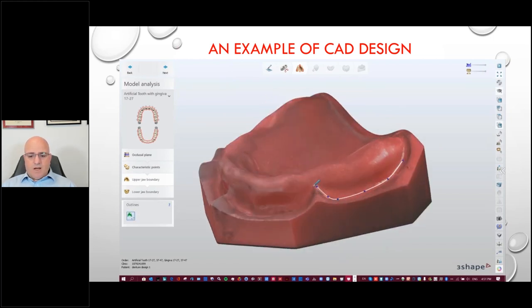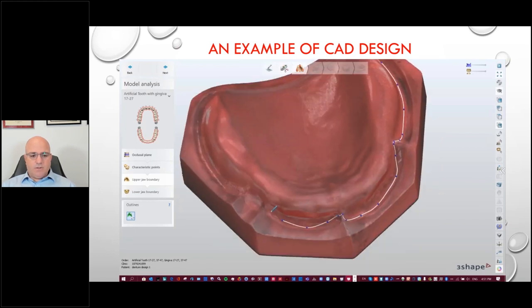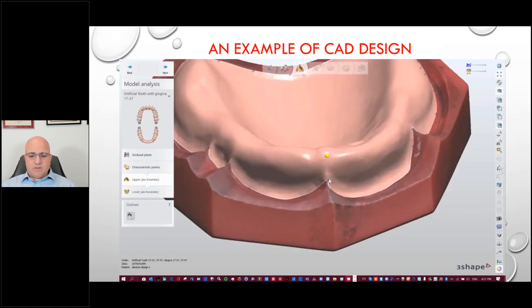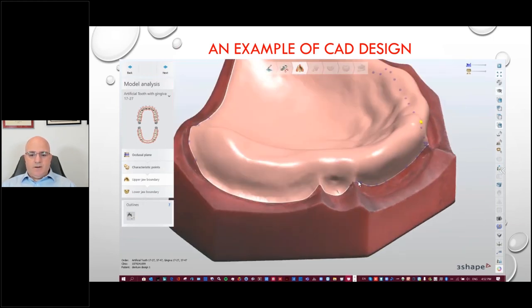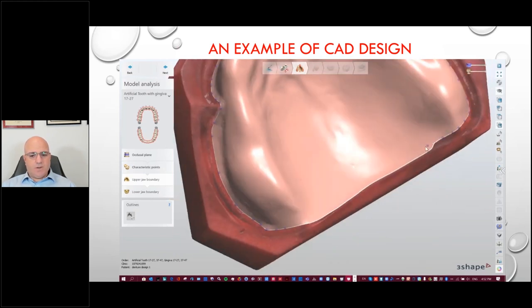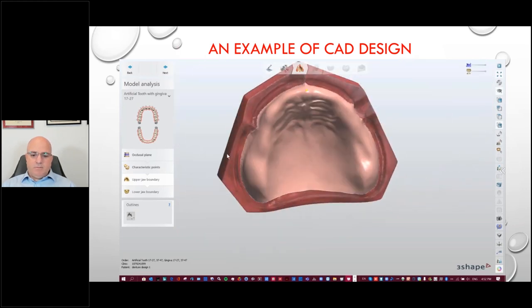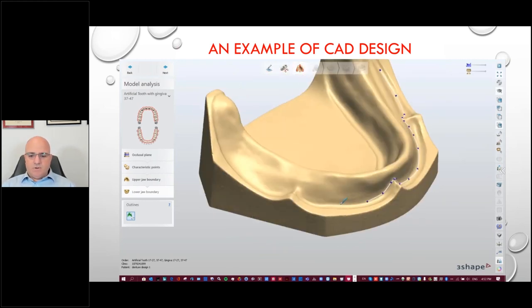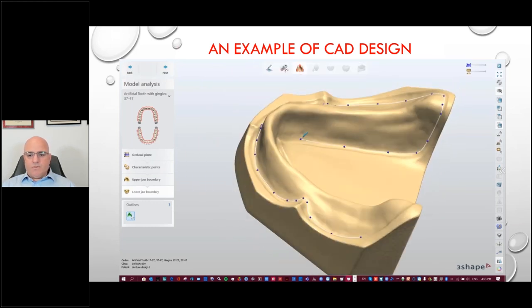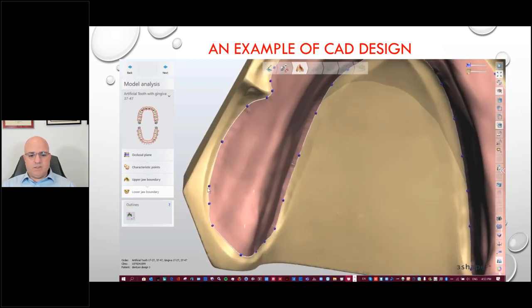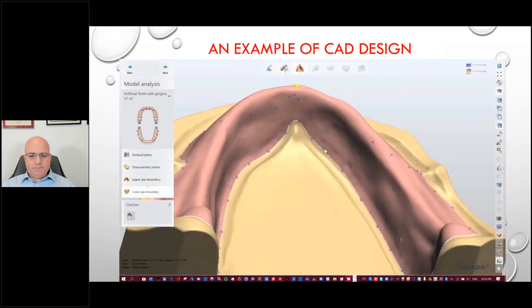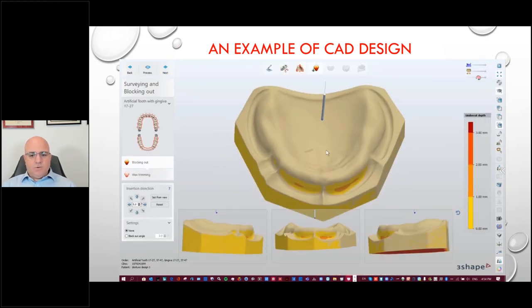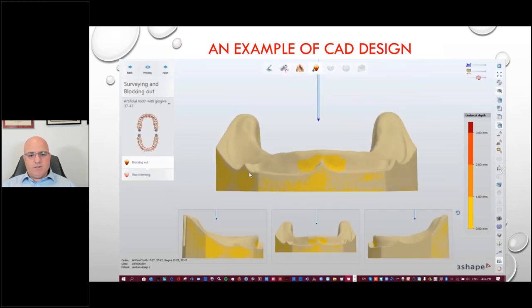The information, knowledge, and expertise are still very relevant — the software cannot design a denture without the dental intelligence of the dental technician. After we re-identify the landmarks, we draw the boundaries — and we know how important boundaries are for dentures. Digital dentures is no different. Once you create that, in Three Shape you can make quick edits by right-clicking a handle and choosing a fast edit design. Within perhaps 30 seconds you can create a virtual base plate.